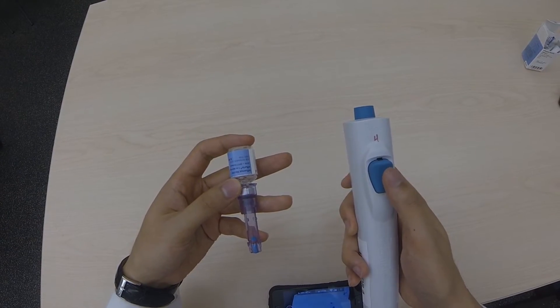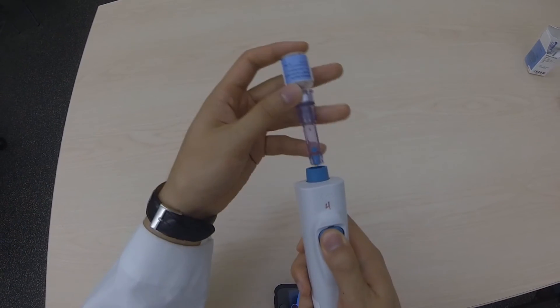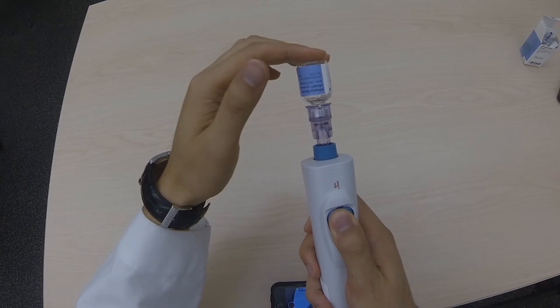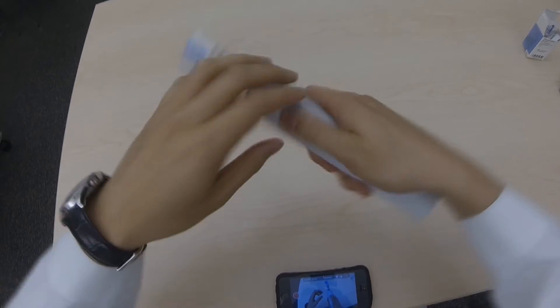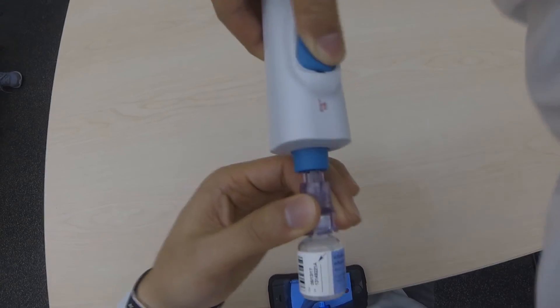Next, hold the top button of the injector as you insert the syringe component plus the solution bottle together vertically. As you push further down, you should hear a click indicating that it's loaded. Flip your device upside down. Lightly twist the solution bottle counterclockwise away from the adapter to remove it.